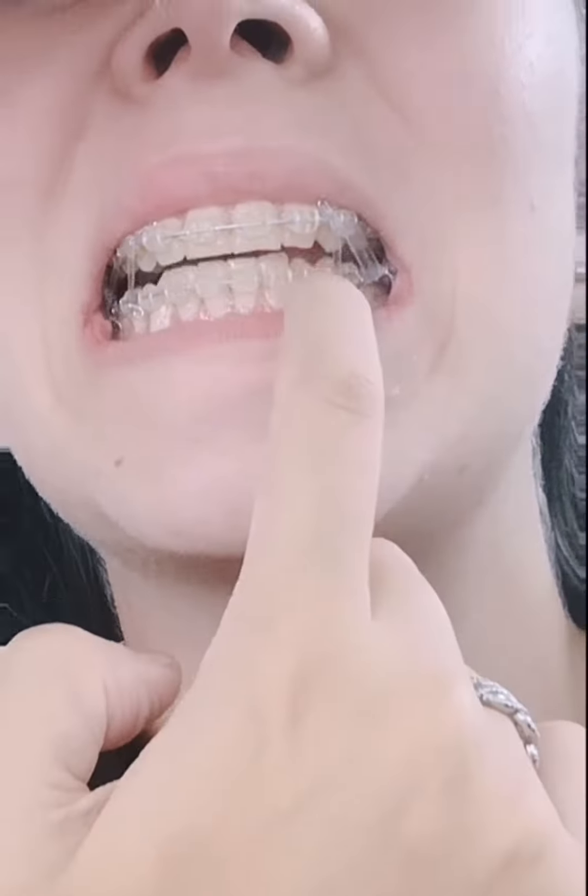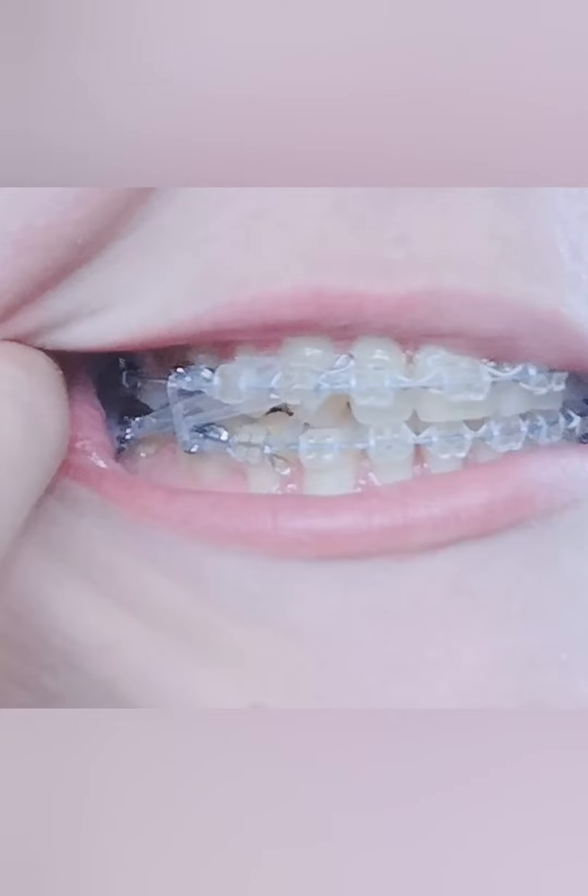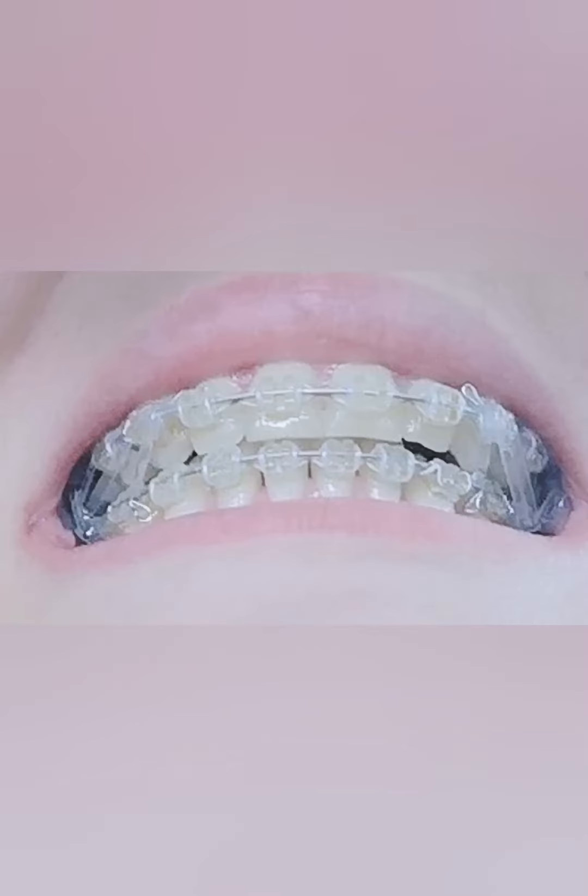Overall they look pretty straight but if I do this there's like a little gap where that tooth faces in, so I think they're just pulling that out. The new method is to make the box formation and then put the canine all the way to the back seven. And you can see the gap at the bottom right because the tooth faces inwards, so that should be sorted.